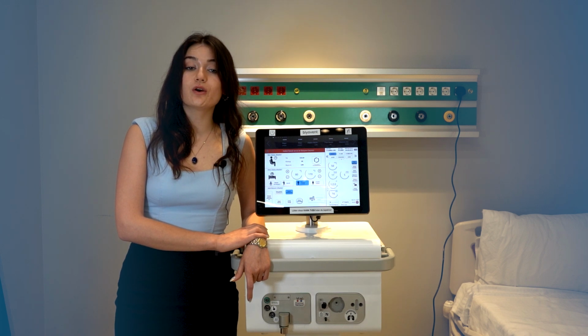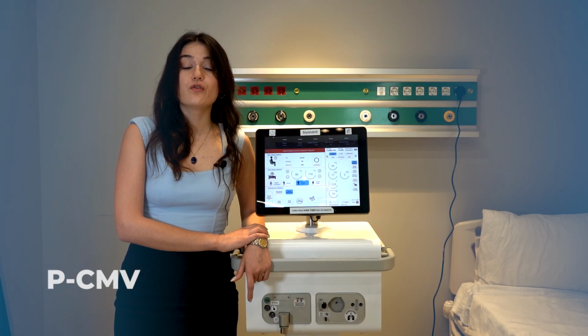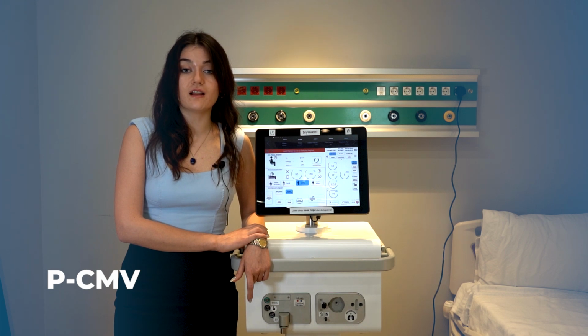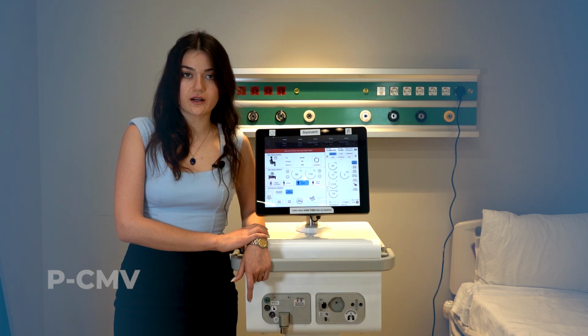The first mode we are going to show is Pressure Target Continuous Mandatory Ventilation Mode. This mode provides fully controlled respiratory support at a specific pressure level. In this mode, the ventilator maintains a specific pressure level at a set time and delivers air to the patient's lungs at this pressure. There is no trigger in this mode. The mode's key points are being pressure targeted and time cycled, and it is mechanically ventilator triggered.